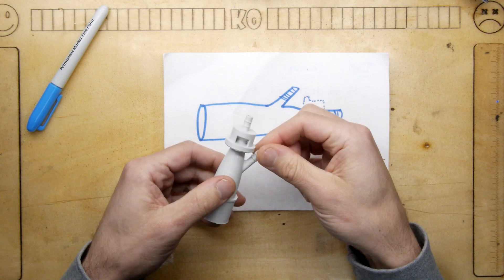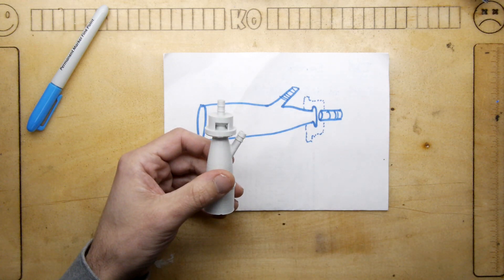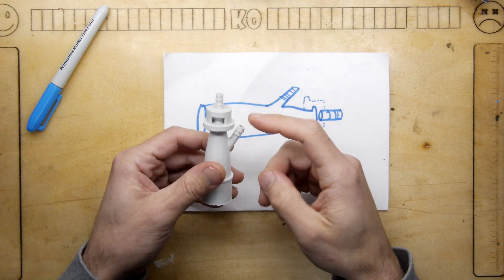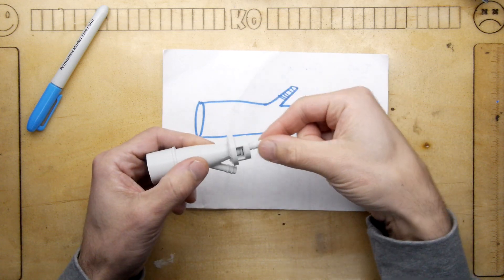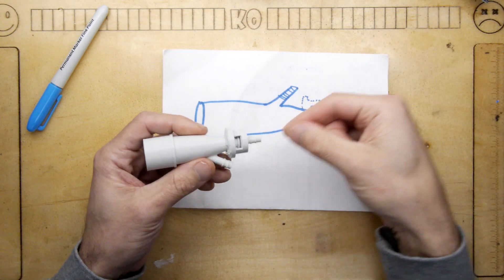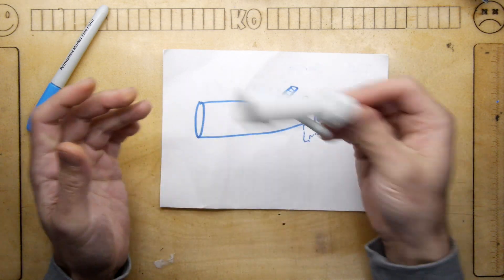There might actually be a one-way valve on here - a piece of plastic and a bit of tube here. I think that tube could go to an oxygen feed and this could go to a mask. It could be like a higher-pressure thing - again, just guessing, just speculating.